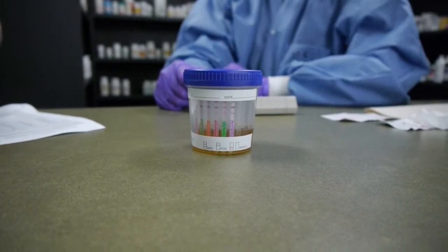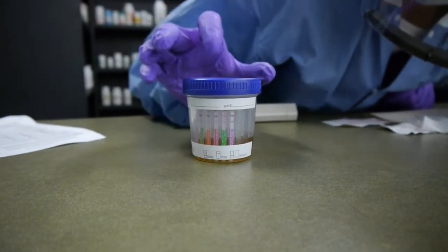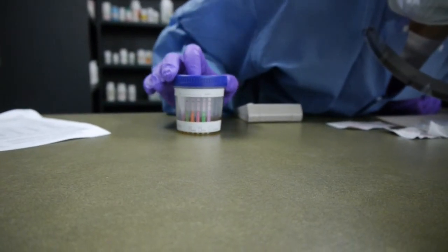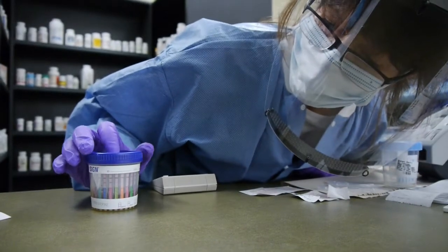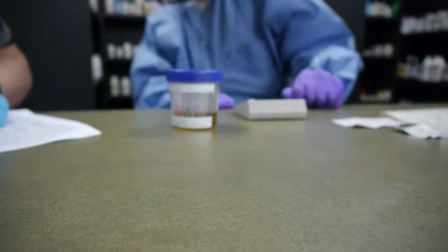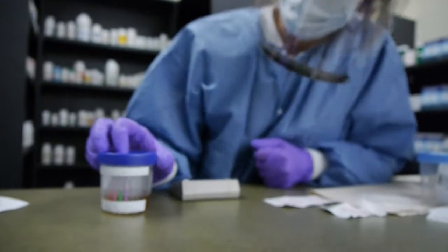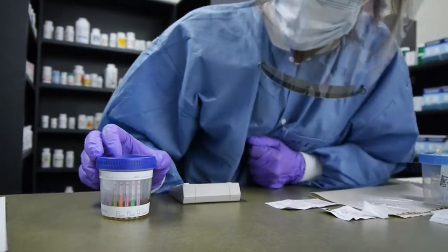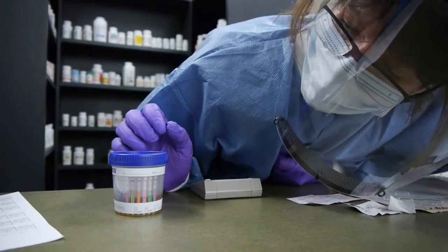Typically when we see a line, such as for HCG, a line meant a positive test. But for drug testing, a positive result means there's no test line. If there's no control line, that means it's an invalid test. We have to be patient.